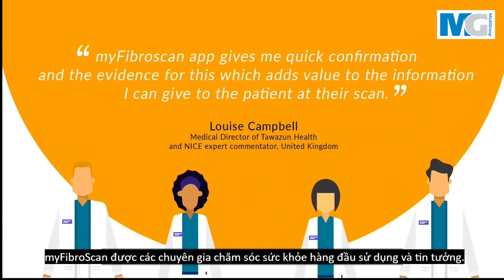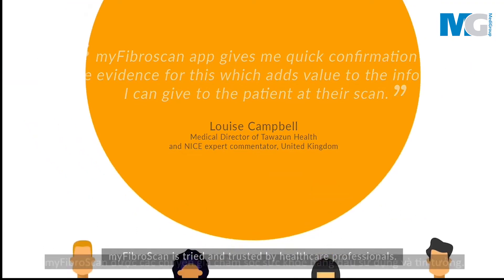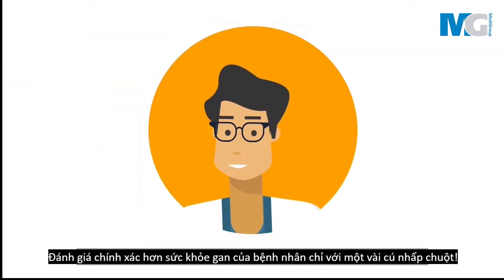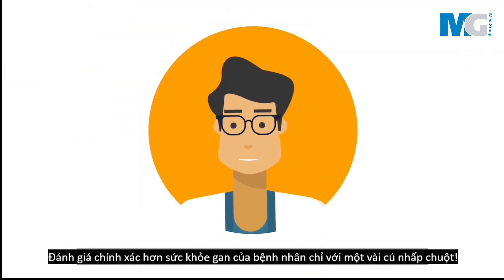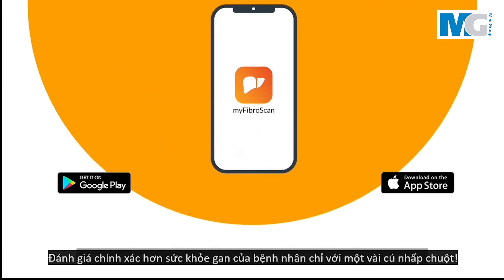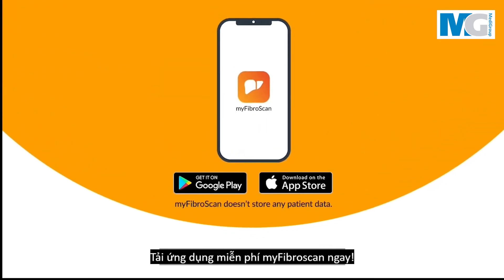MyFibroScan is tried and trusted by healthcare professionals. More accurately assess your patient's liver health with just a few clicks. Download MyFibroScan for free now.